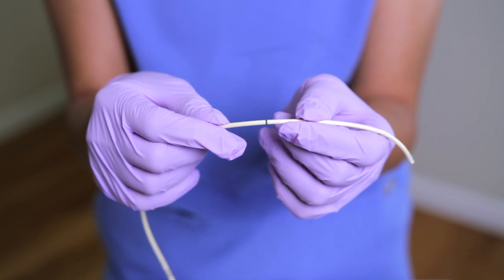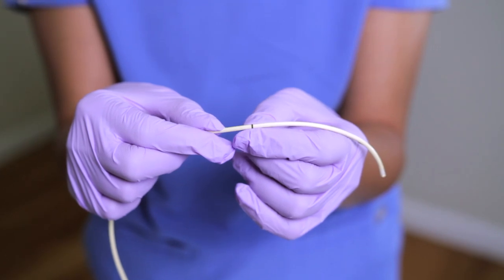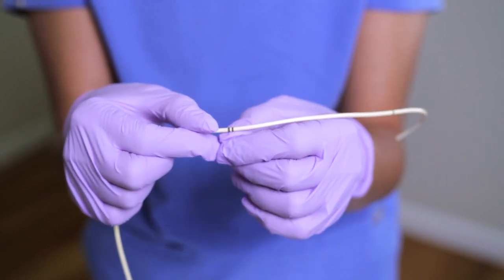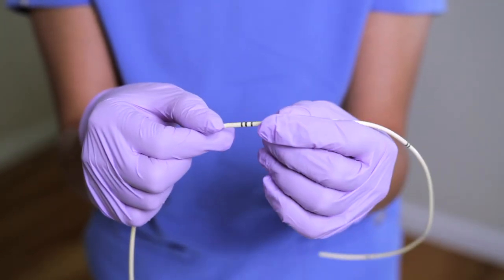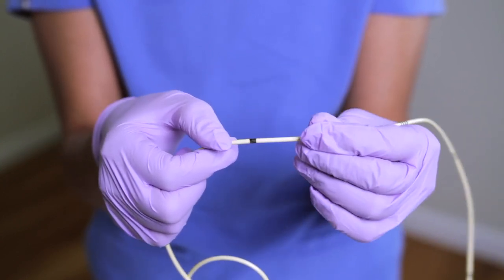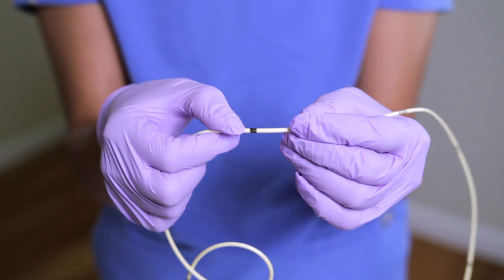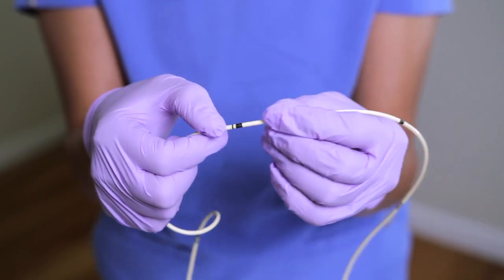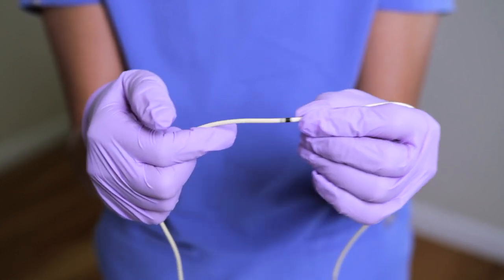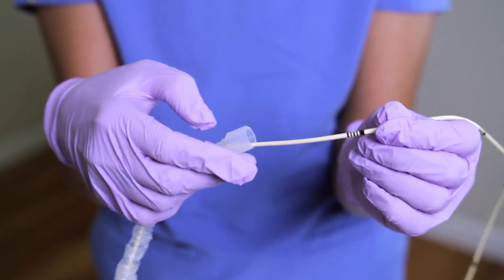The Swan markings go up to 100 centimeters. A single thin black line indicates 10 centimeters, two lines indicate 20 centimeters, three lines 30 centimeters, and four lines 40 centimeters. A thick black line indicates 50 centimeters. As you continue forward, a thick black line plus one thin line equals 60 centimeters, and so forth up through 70, 80, 90, and 100 centimeters.